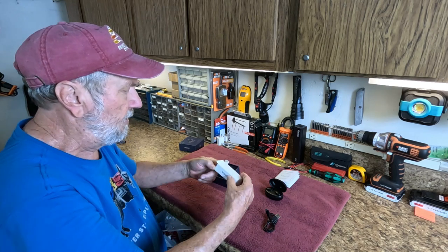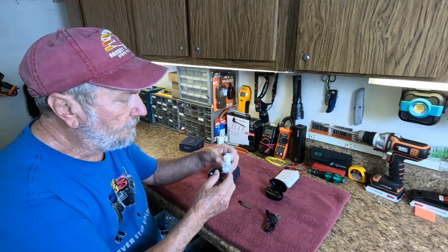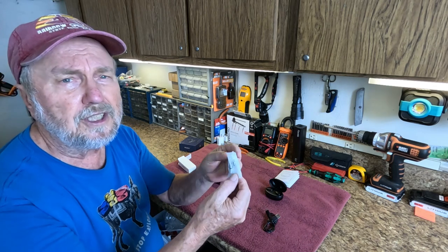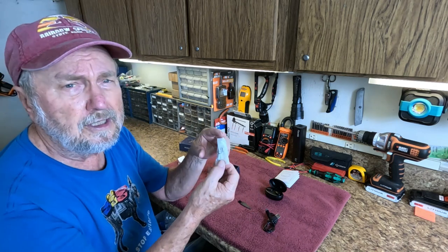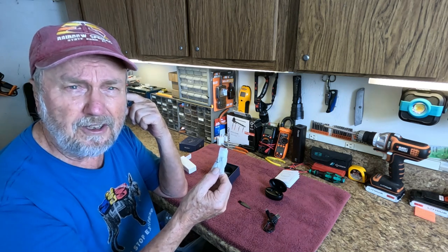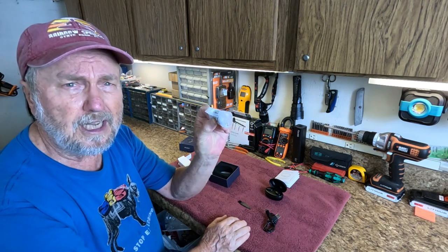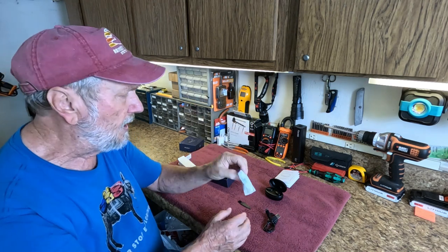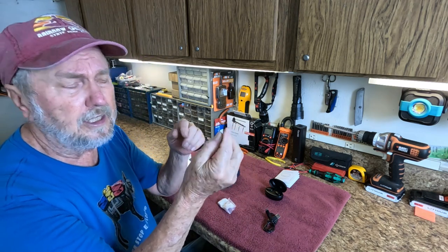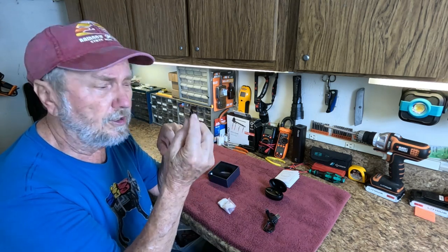Here are the other things you get. Everyone's ears aren't the same - the ear pieces, the little rubber things that fit in your ear channel, come in different sizes for different size ears so you might want to try them. You also get an earwax cleaning tool to clean any foreign debris from the headpieces.